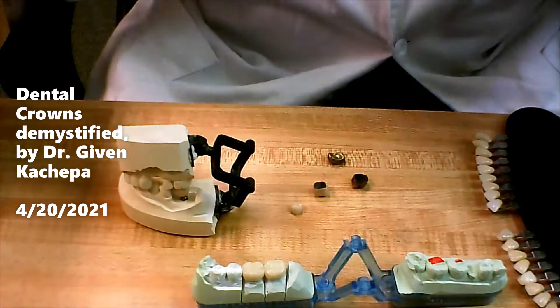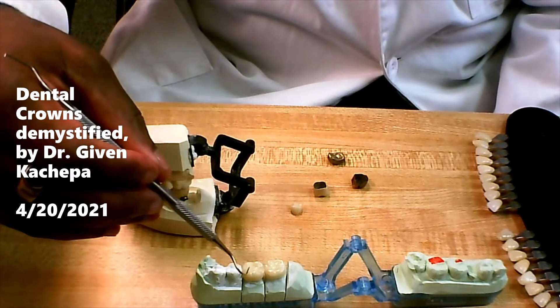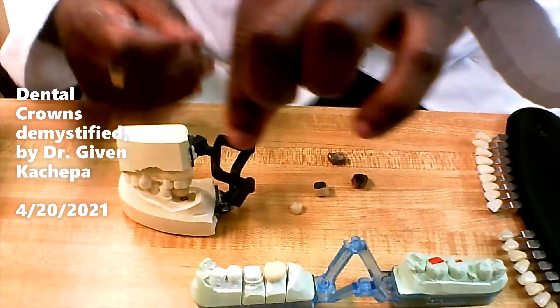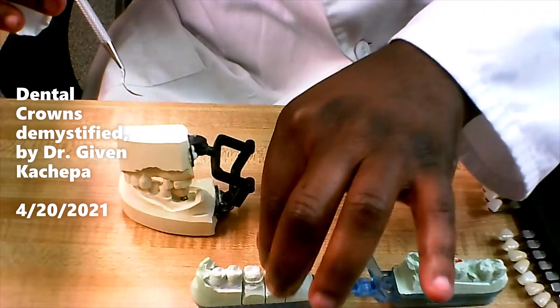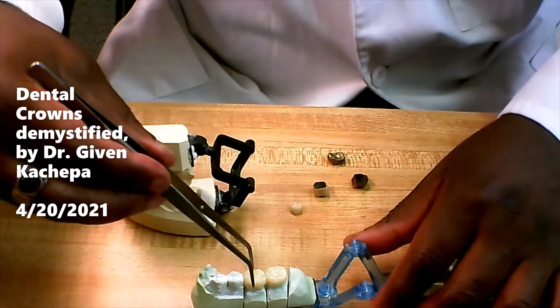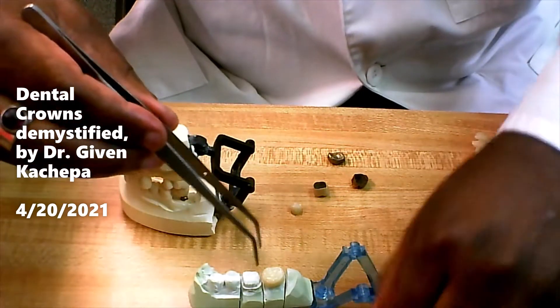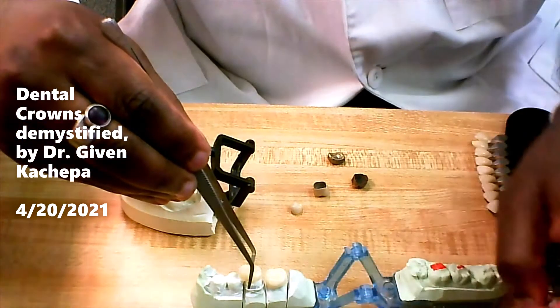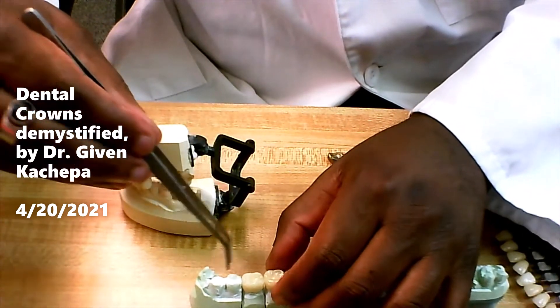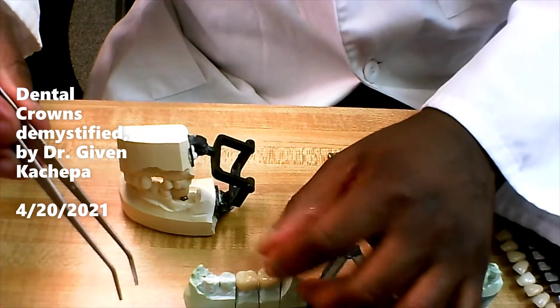I have a few cases here. On this patient we did two crowns. I'm going to take them off so you can see what they look like — there's one coming off like that. That's after the crown has been removed, and then I'm going to put it back on like that. And that's how a dental crown sits.